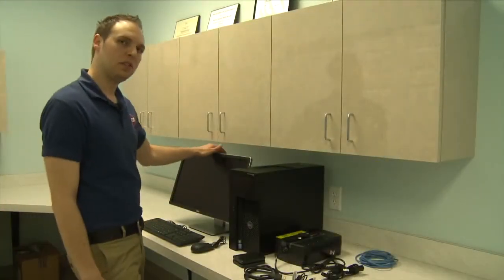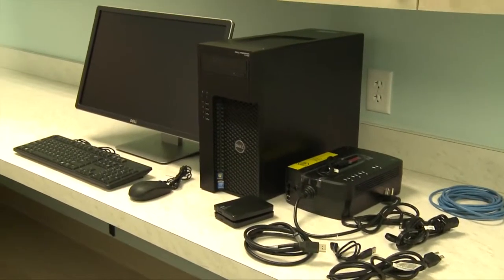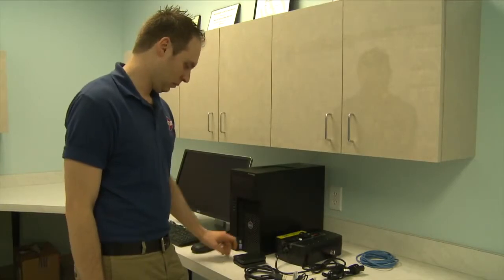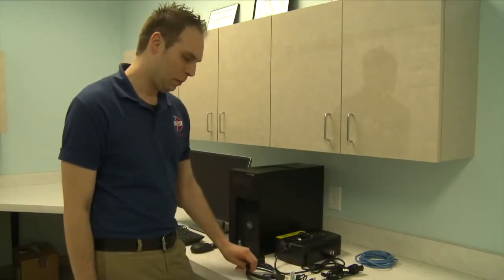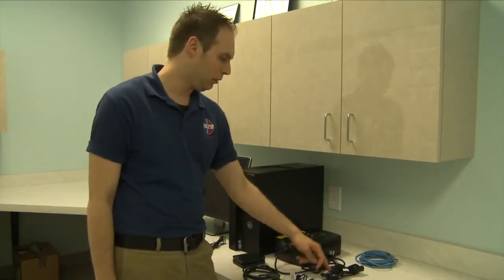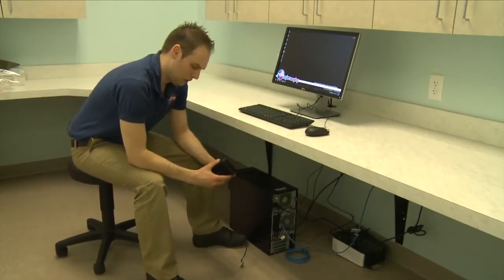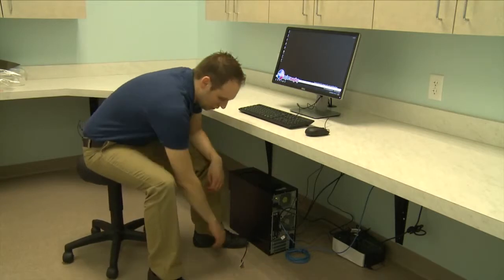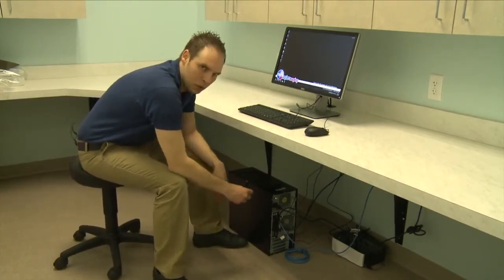Here you have your server setup, which comes with everything you need, including your server tower, monitor, keyboard and mouse, your battery backup system with data cable, your data backups, data cable, your monitor cable, your two power cables — one for the computer and monitor — and your network cable. With the server, you have an off-site backup system. You have two external hard drives that go with the server. You want to have one cable plugged in at a time; the other cable you can put aside.